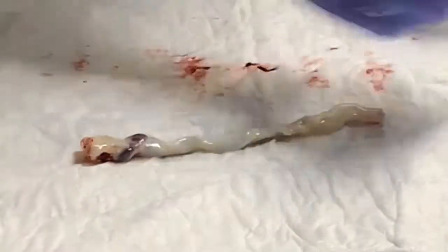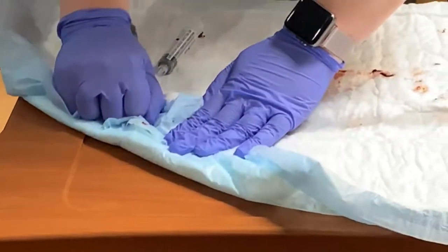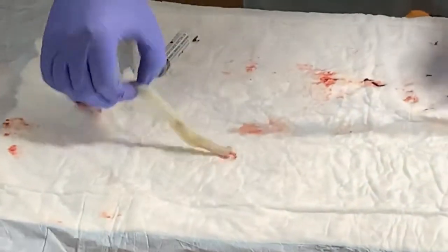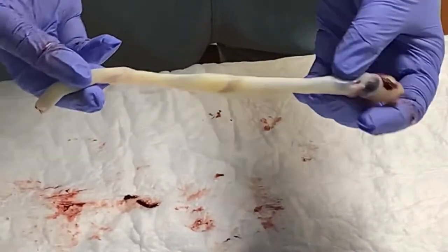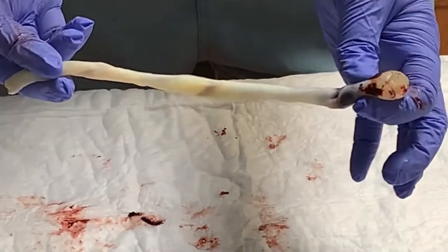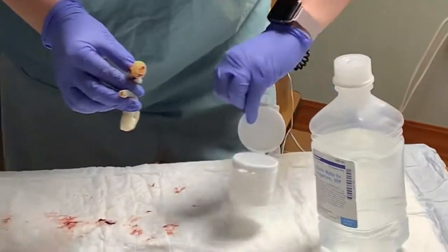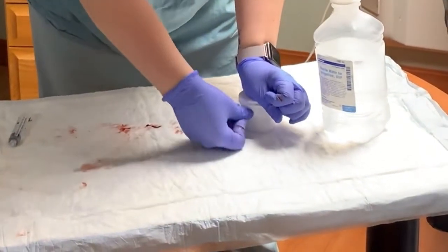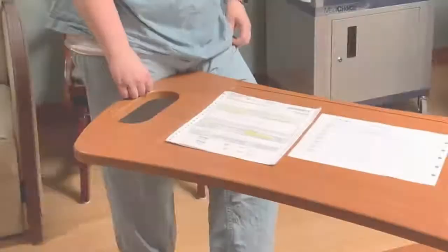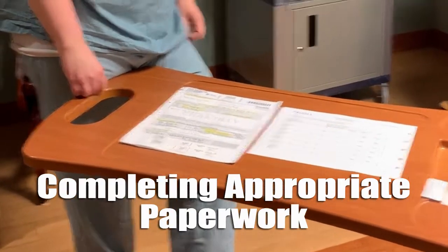And depending on the cord, you might not have to rinse as much. And then you're going to want to pat it dry. So then it's fairly clean. If you do have a large section of blood, you can trim the cord to get the last little bit out, but this is fairly clean. And then we will put it in our container. Close the lid.